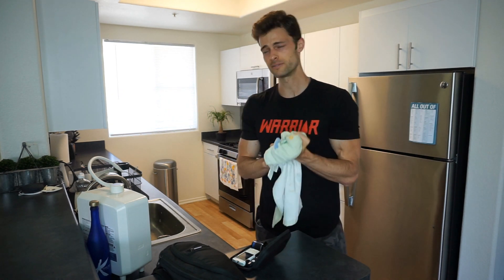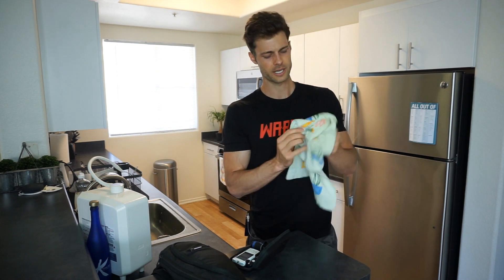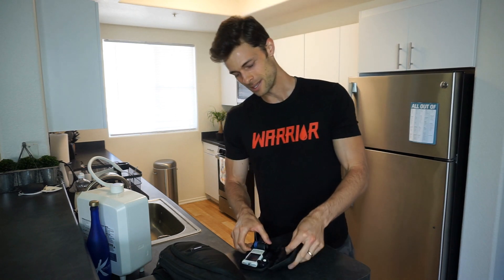One tip: use warm water if you can. Warm water can help the circulation of your blood. Cold water can make it hard to get the blood out of your fingertips. So make sure your hands are dry, toss the towel, and get ready for the blood sugar measurement.